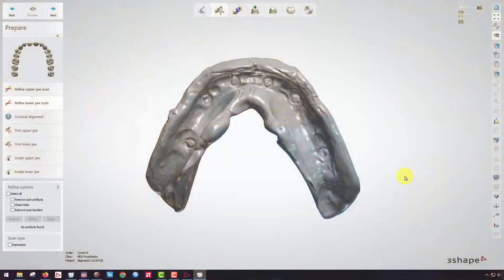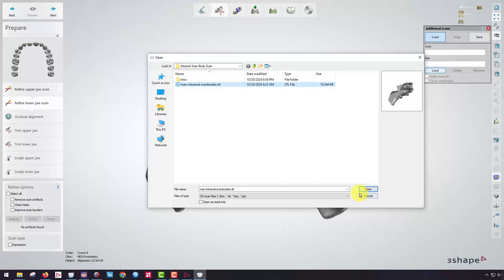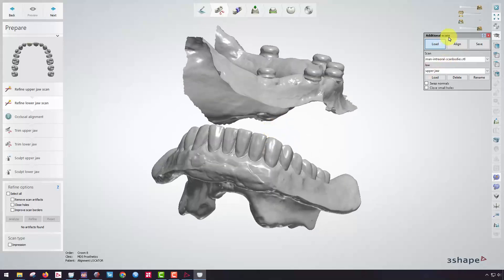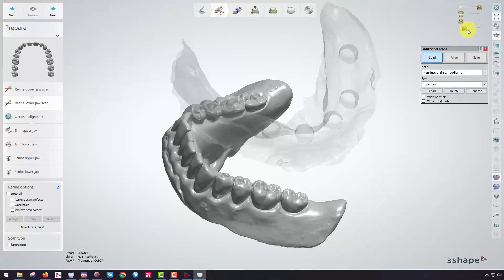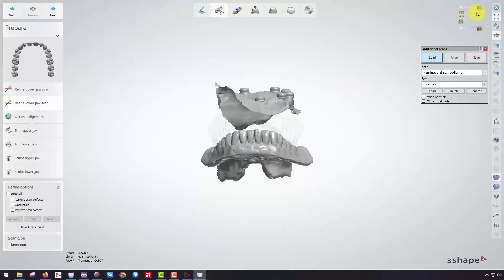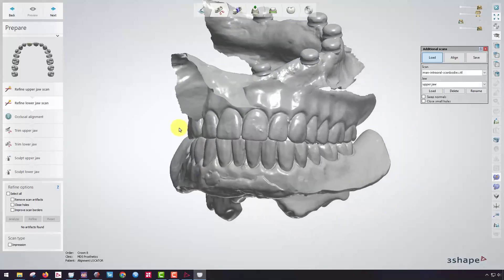Under the refine lower jaw scan, I need to import my other scan. I'll left-click the additional scans button at the bottom right, then click the load button and then the smaller load button at the bottom. This gives me the opportunity to bring in the intraoral scan of the patient's dentureless arch with the scan bodies in place — a refined scan I already aligned using the alignment function. Once I bring that in, I see an additional slider at the top. This is my intraoral or dentureless scan refined from my intraoral scanner, and here's my reference denture. I want to take this intraoral scan and align it to that 360 lower denture so it'll be at the correct orientation compared to the upper.